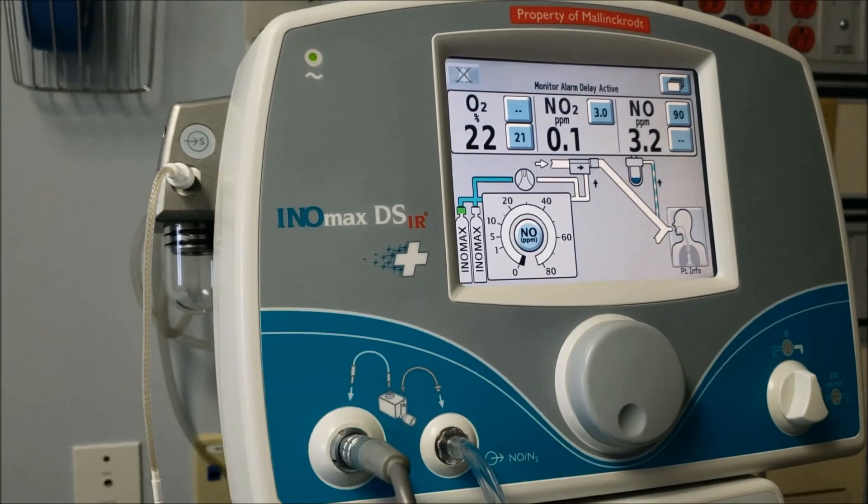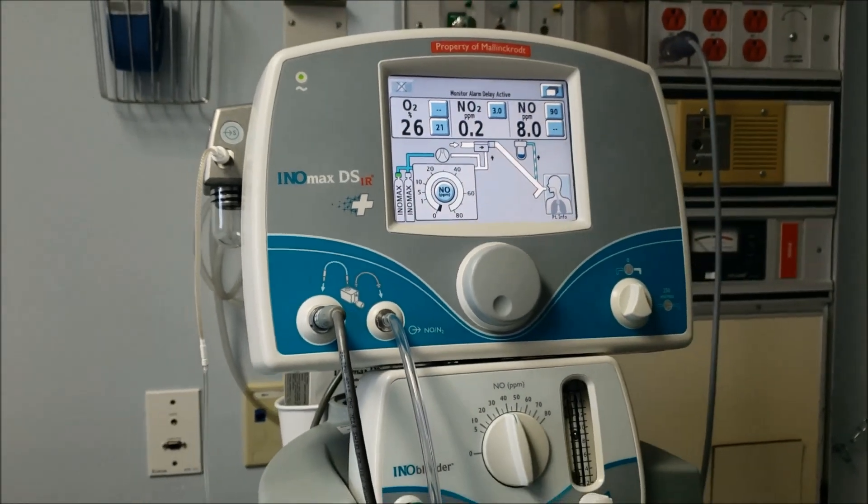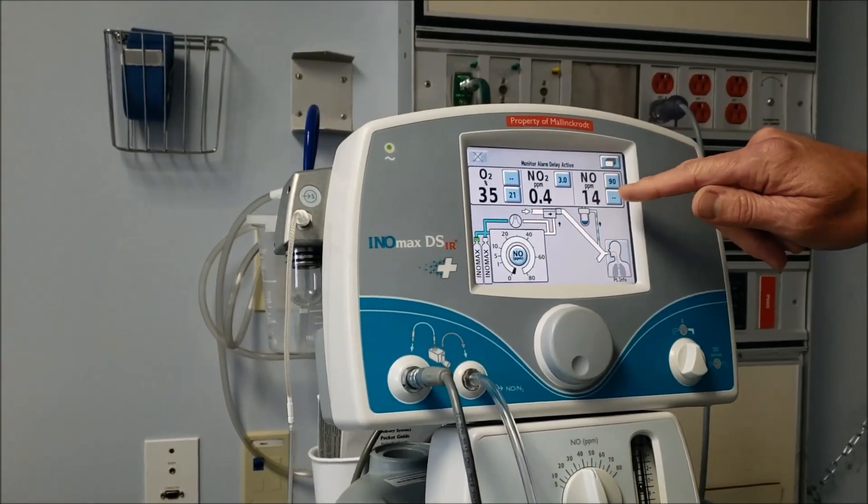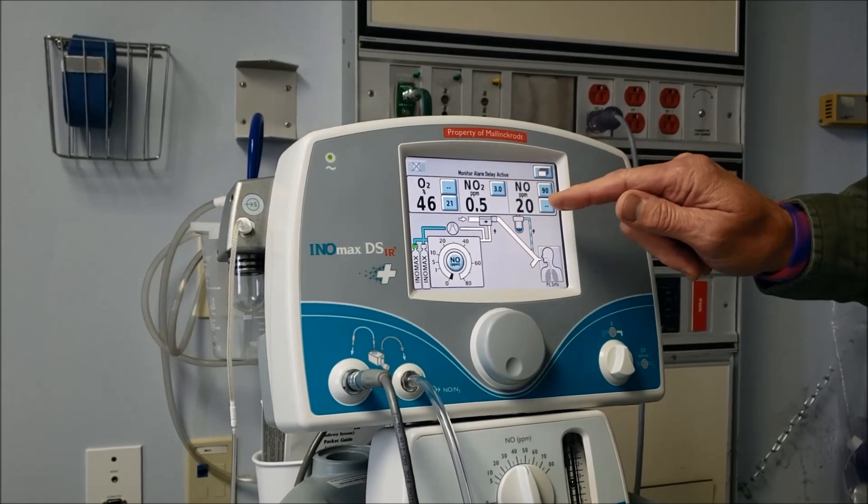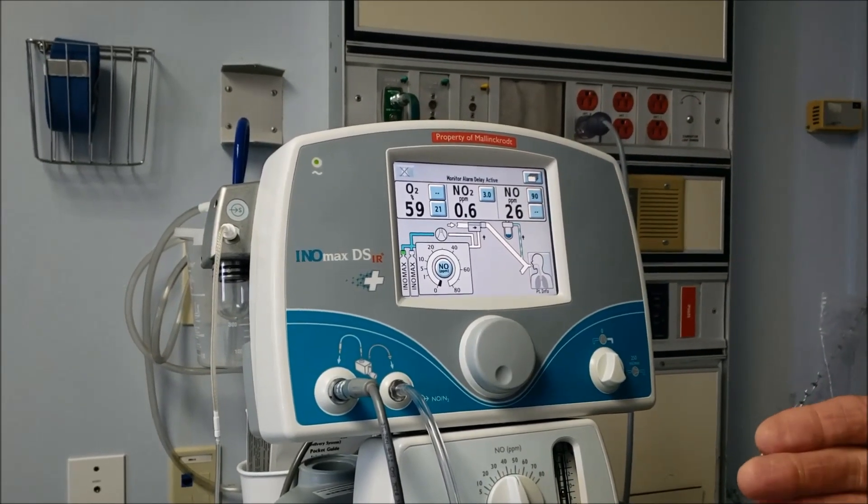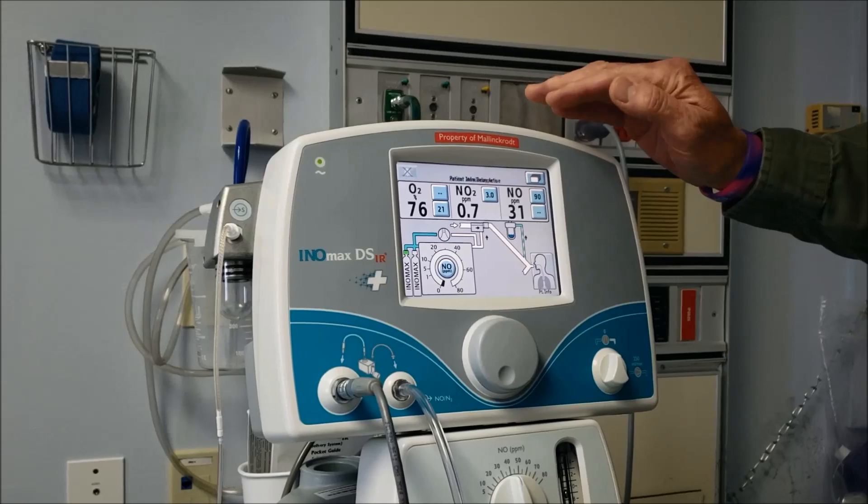It's very important that we don't put the mask on the patient until this is reading 40 parts per million. We want to initiate our therapy at the full range at 40 parts per million.